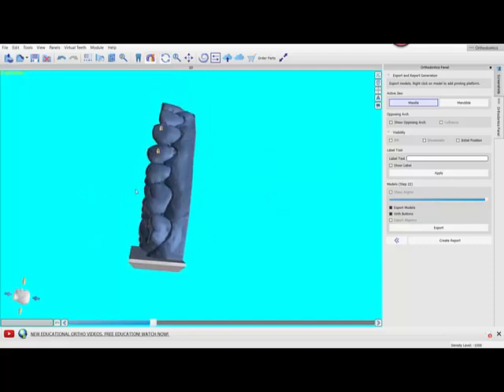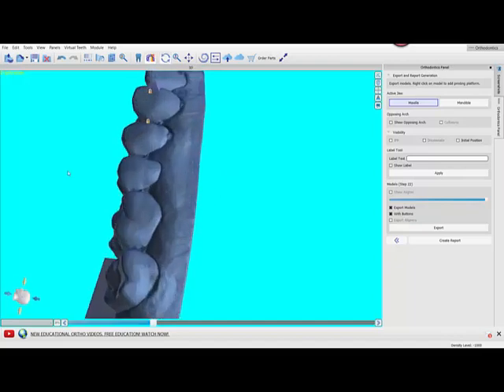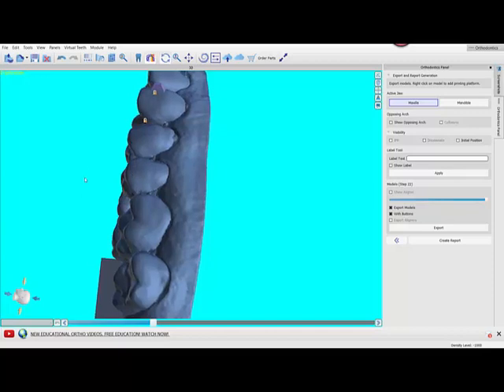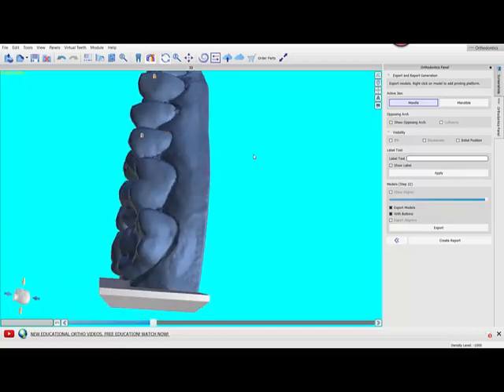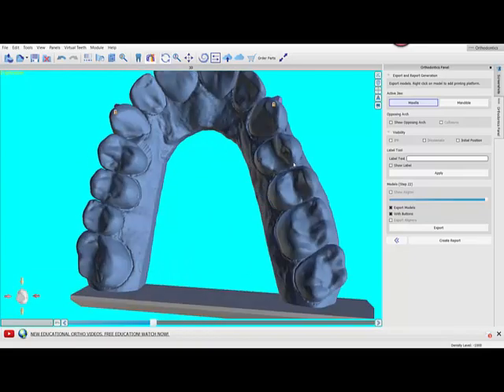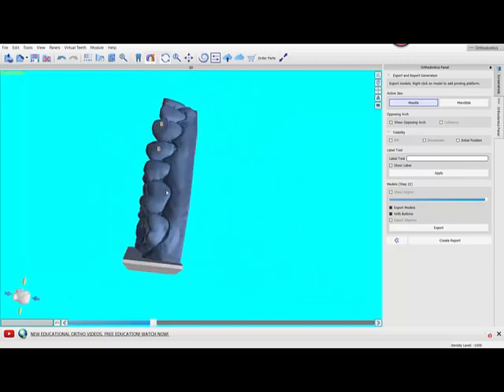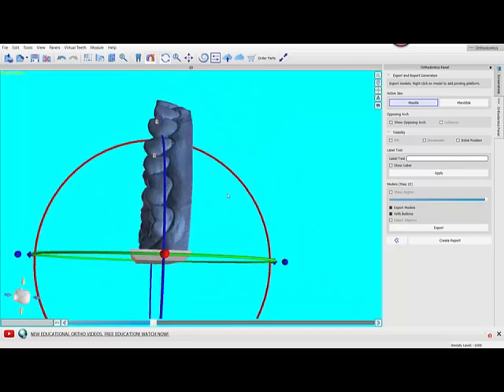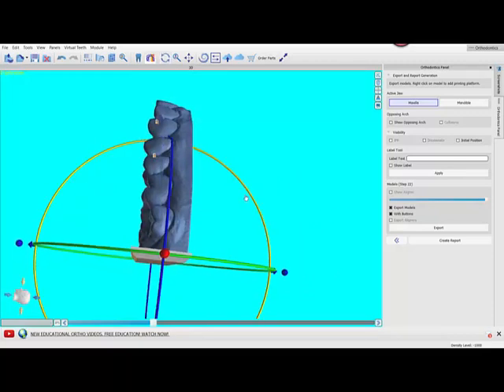The most important, biggest time I see the severe need for tipping it back is if you're missing a posterior tooth, a molar or premolar, because in that situation the marginal ridge of the anterior tooth to the edentulous spot may actually be sticking down farther than anything else, which means it's unsupported and it will not print. You'll have a premolar that is essentially sliced off right here and the trays won't fit.